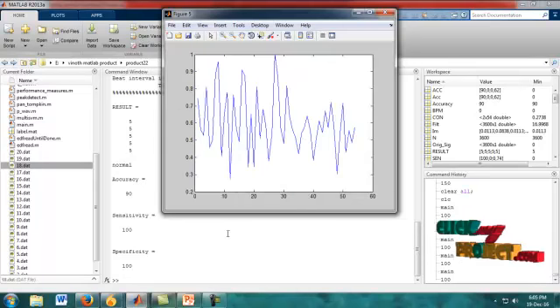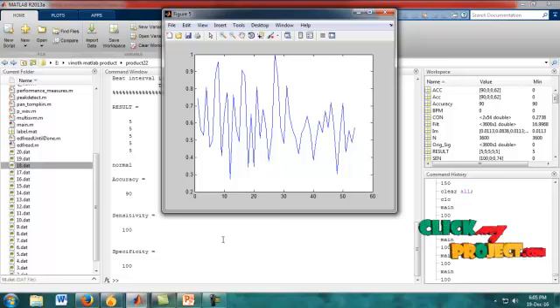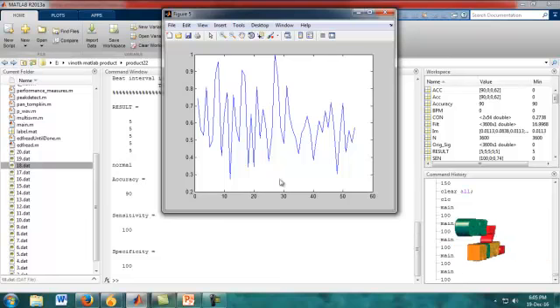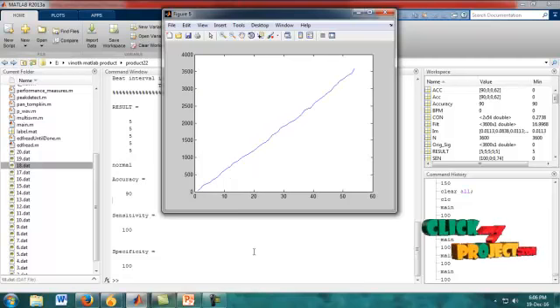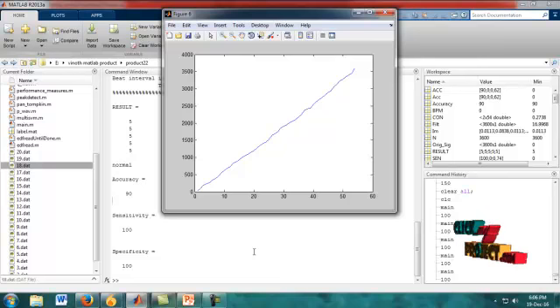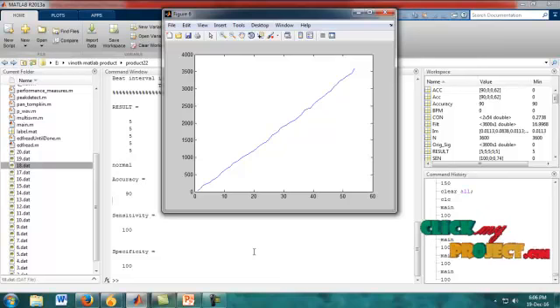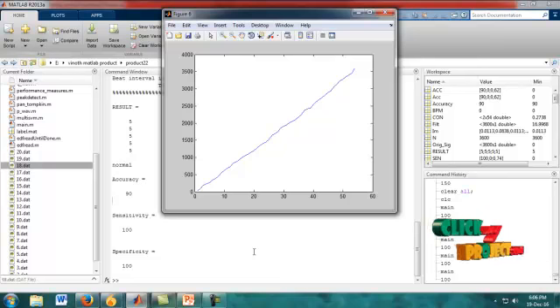Figure 5 shows the P wave detection of our input signal. Figure 6 shows the maximum beat rate of our ECG signal, displaying the maximum heartbeat rate.